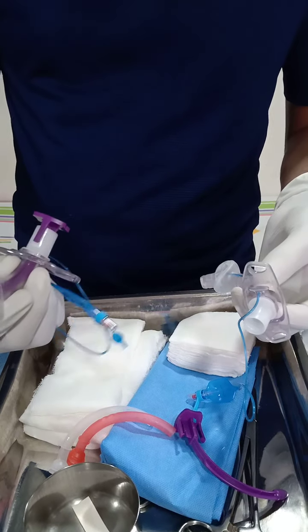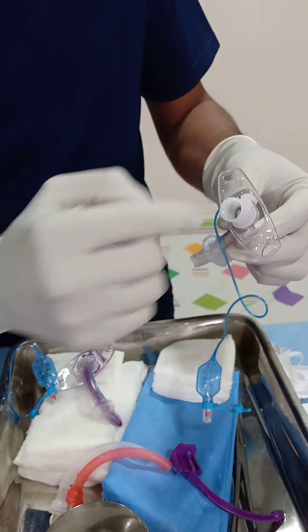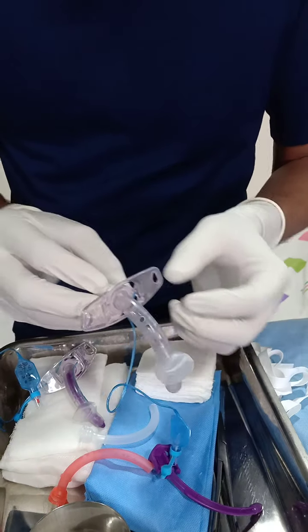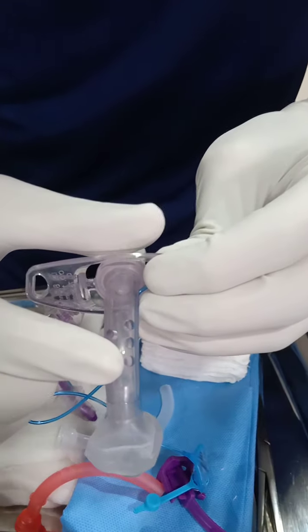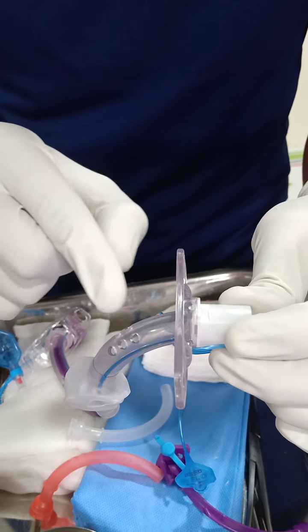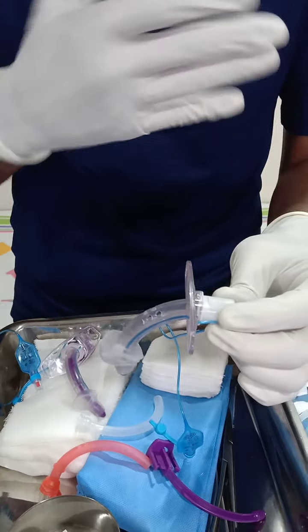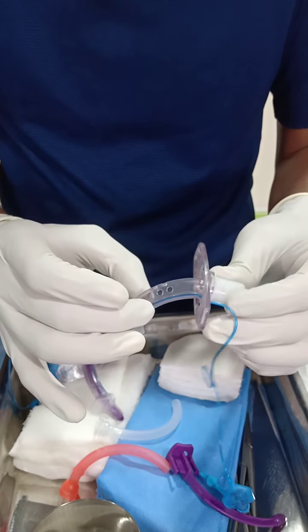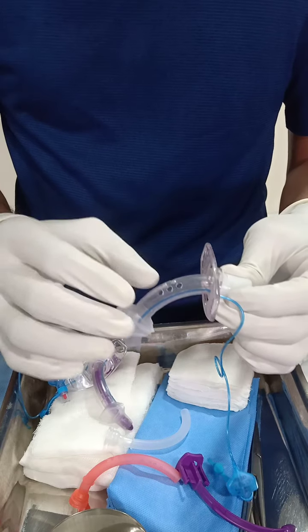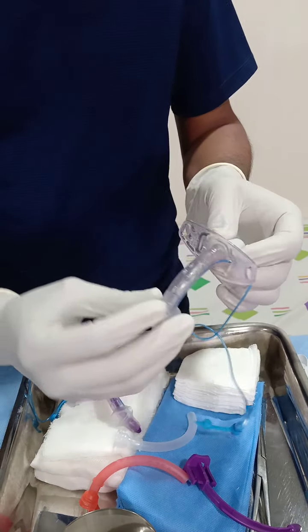We have two tubes here: one with a single lumen, but there are also double lumen tubes where one tube is introduced inside the other. Another feature visible in this tube is the presence of fenestrations — holes on the upper side. When the tube is placed in the patient, these holes allow air to pass through the tracheostomy tube beyond the vocal cords and out through the mouth, so this is used when we want the patient to speak. These ports may also help clear secretions, but their presence predisposes to aspiration, and if we are ventilating the patient with the ports open they will cause leaks.